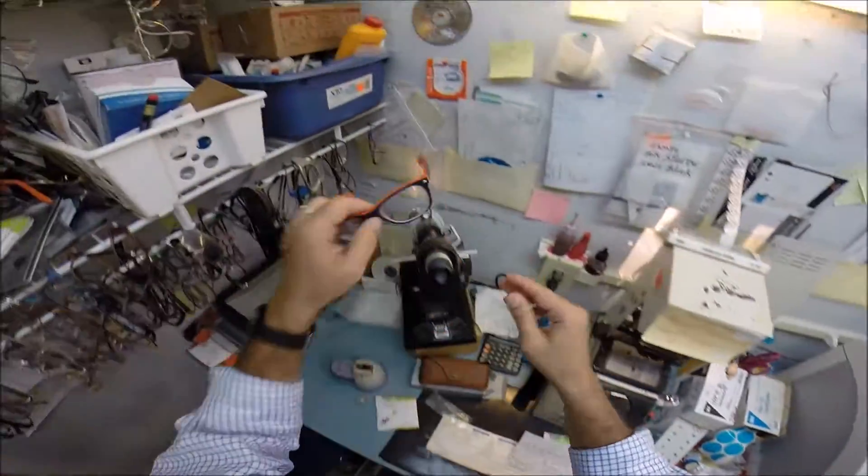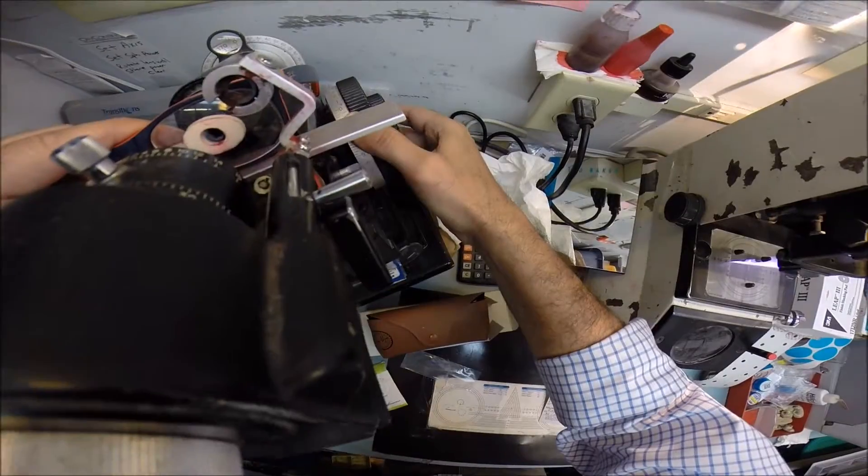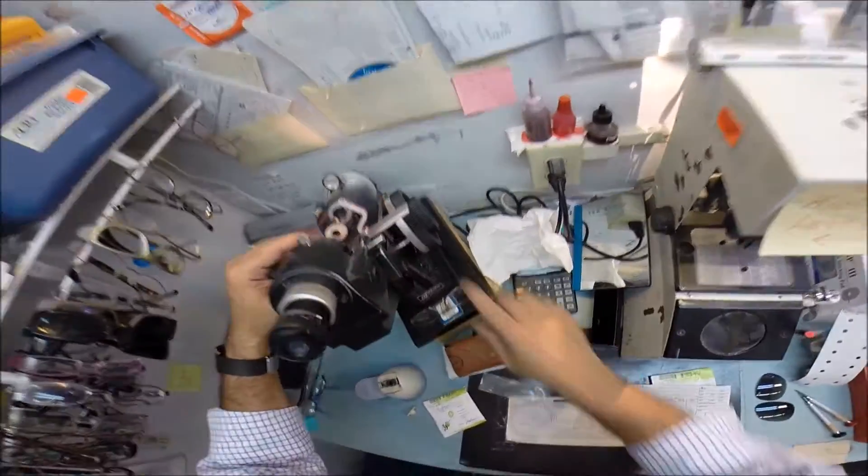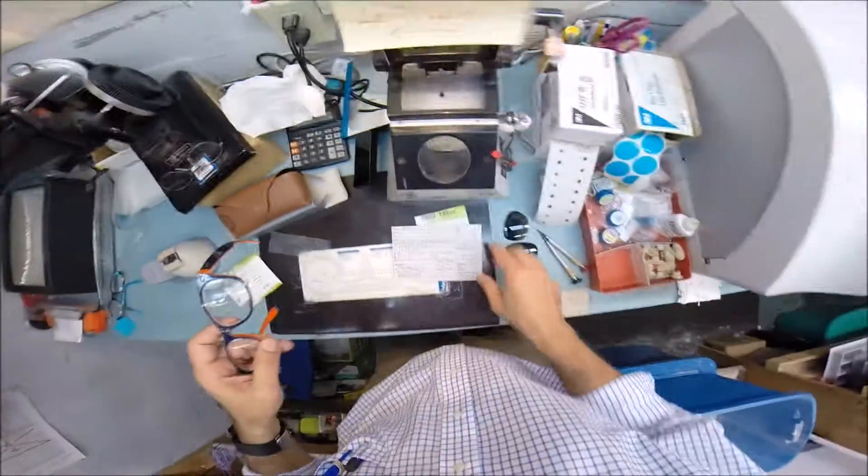Pull that sticker off. Verify. Of course, there's no way I can cut a spherical lens wrong, but we're reading minus five and a quarter. So, that is cut perfectly.